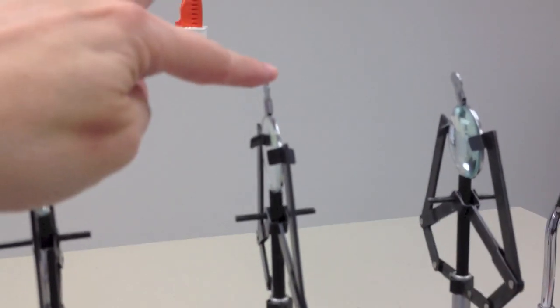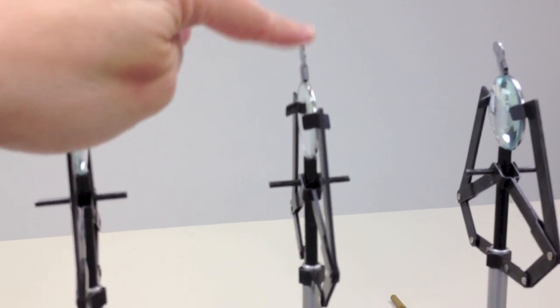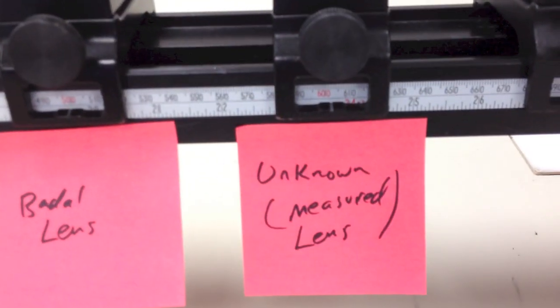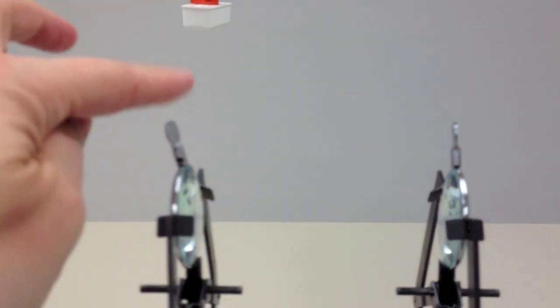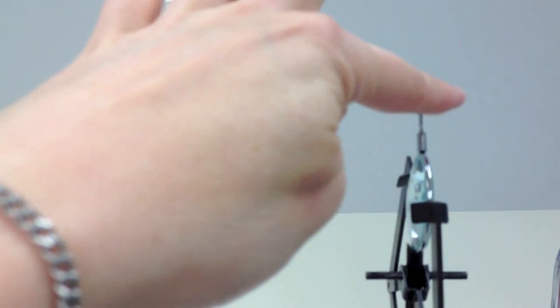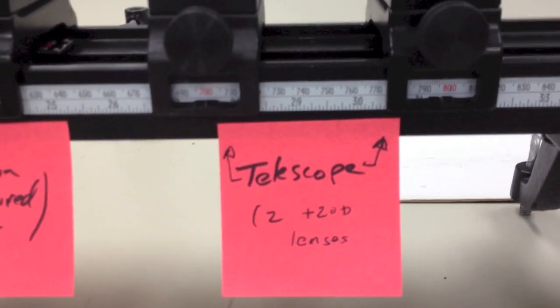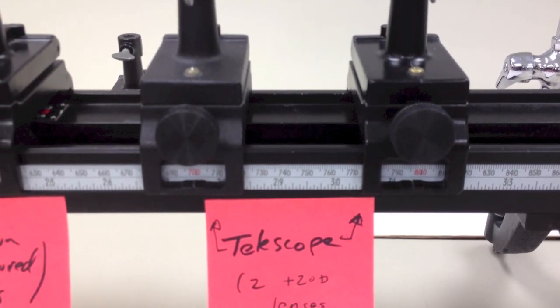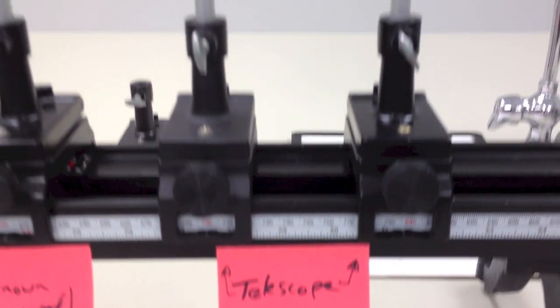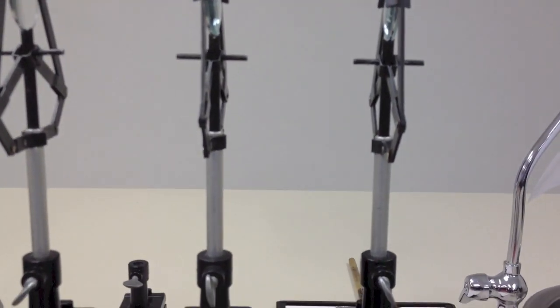The next thing in line is going to be your unknown lens, which you're going to be measuring. And again, I've got that marked over here as unknown lens. And the next thing you have are two plus 20 lenses, one plus 20 and another plus 20 over here. And those two together form a telescope system. These two lenses need to be approximately 10 centimeters away from each other, but we're going to adjust their position just a little bit as we go through the lab.